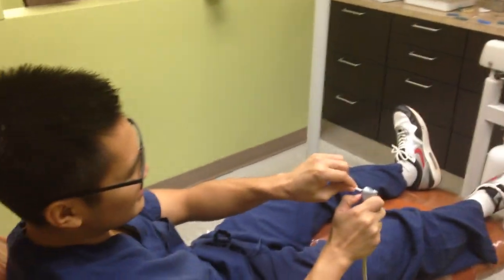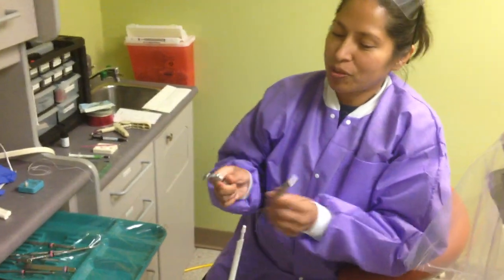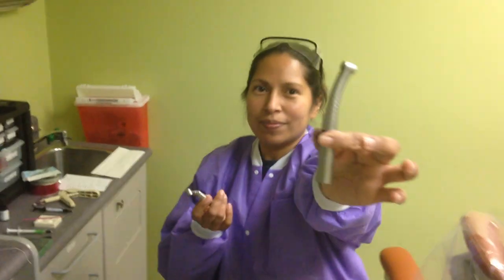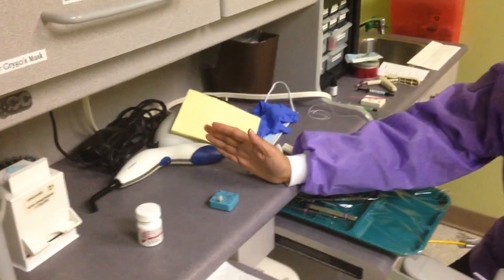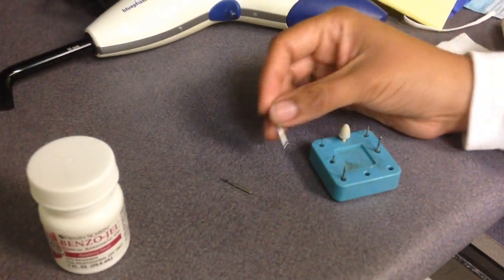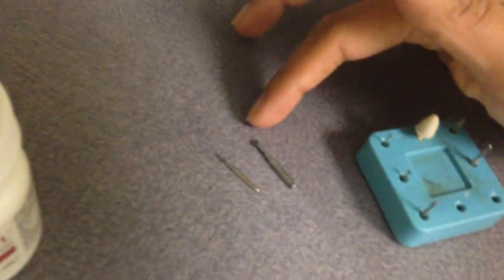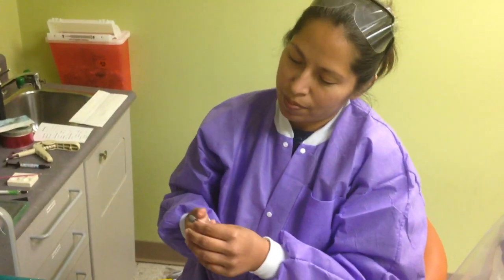Put the air water tip in before you put the patient in, but you can do it while the patient's sitting. You need your handpieces — you need a high-speed handpiece. This one we use is fiber optic; it has a push button to push the burs in, and a contra-angle slow-speed handpiece. For high-speed, you've got your 557. For slow-speed, you've got your latch number eight carbide bur. Push the button, push the bur in, make sure it's locked in.